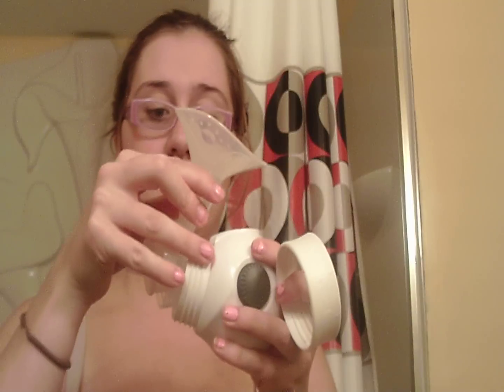So you take it apart — there's the bottle, and then you have this little thing that you take off, and then you take this apart, and that separates, and then you have this little thing. No suction will happen without this little thing. But when you buy it, it comes already put together, and I actually didn't even have to read the instructions to put this thing together, so that made me really happy.